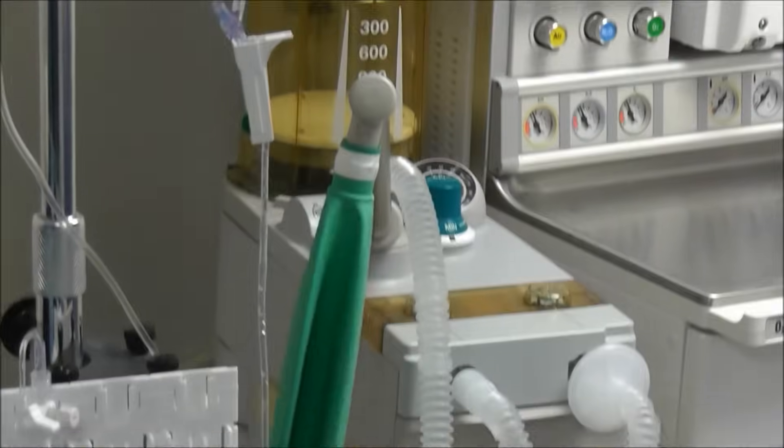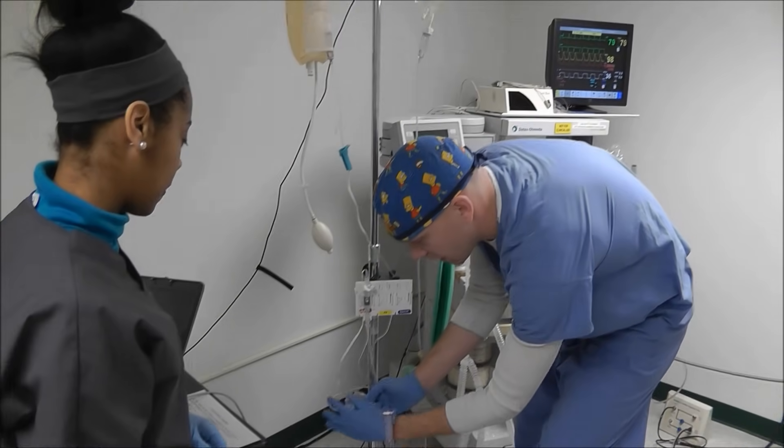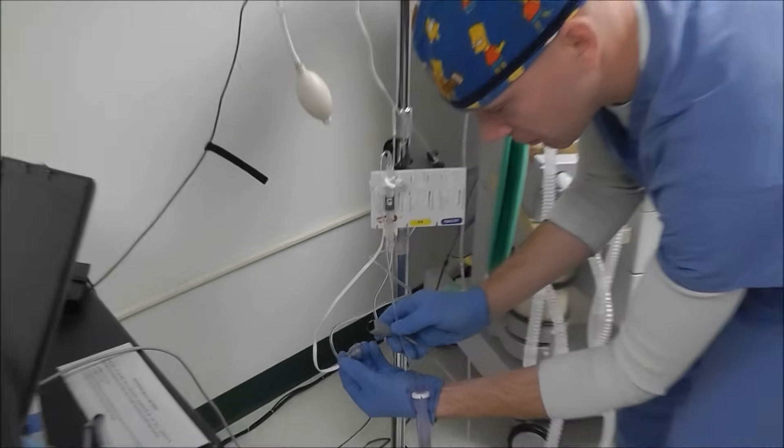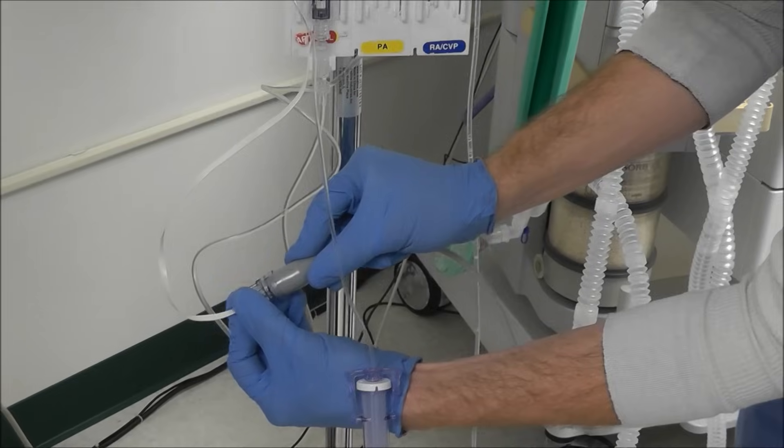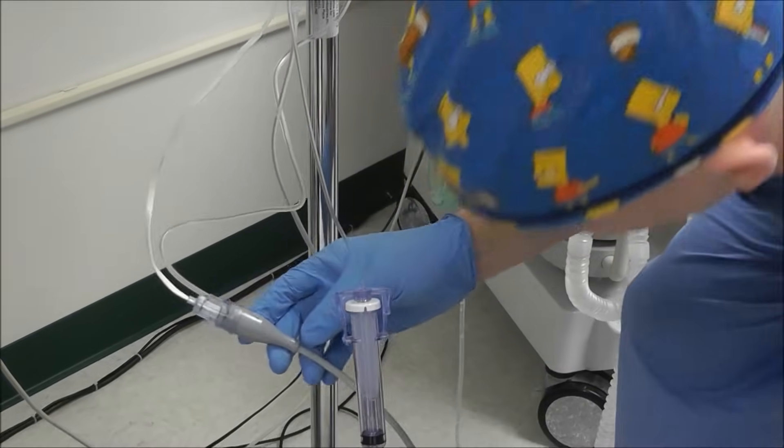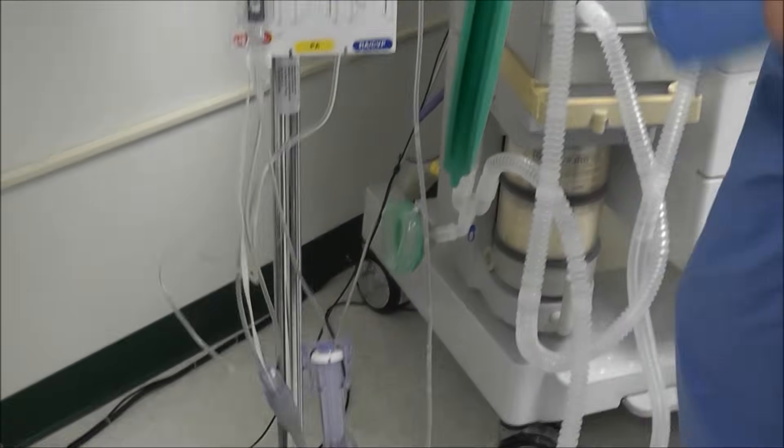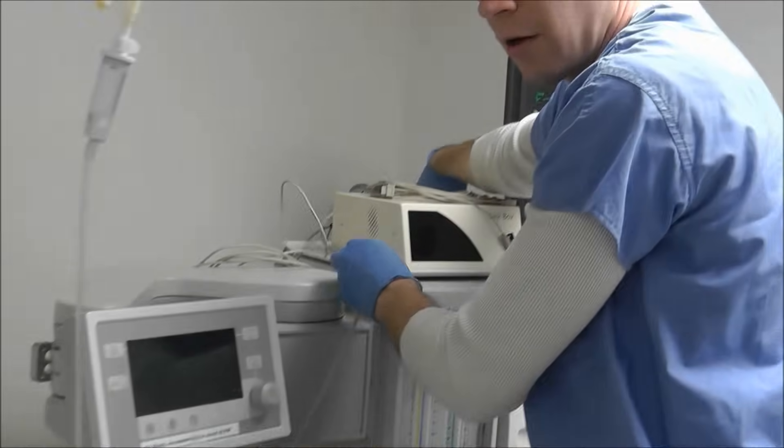The only thing that we need to do now is we just need to come down here and actually connect the transducer cable to the transducer and then plug it up into our monitor up here.